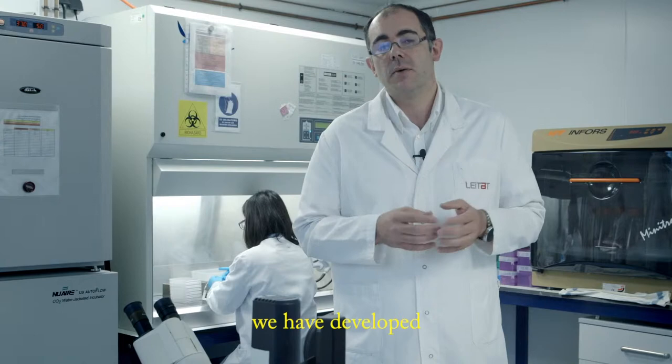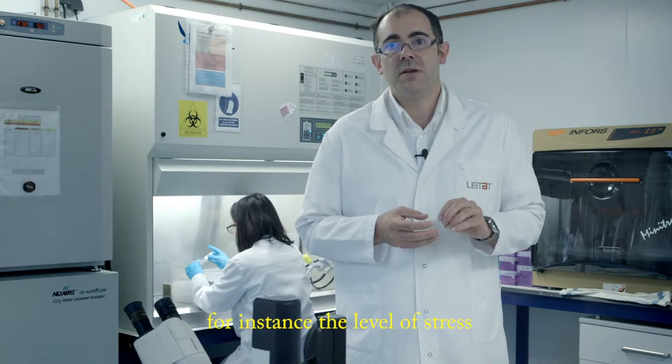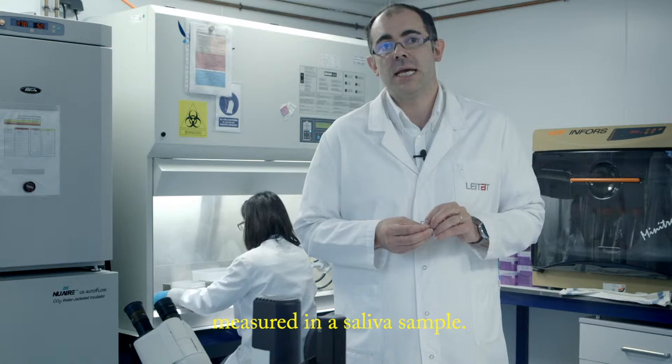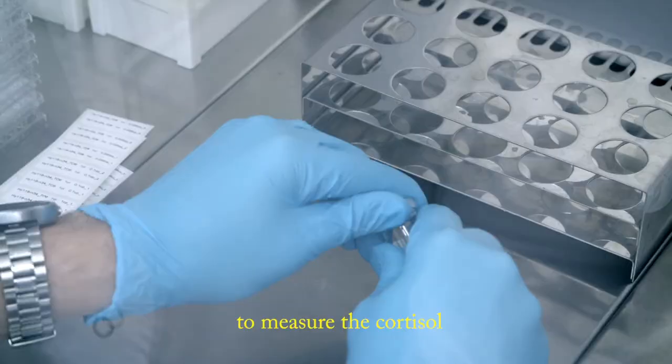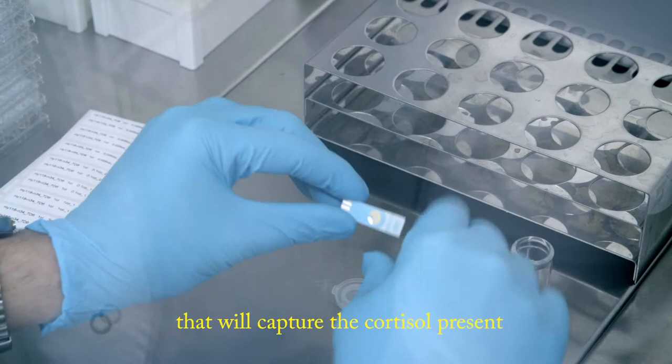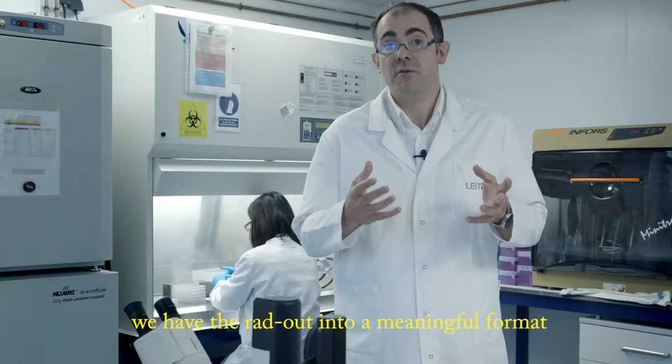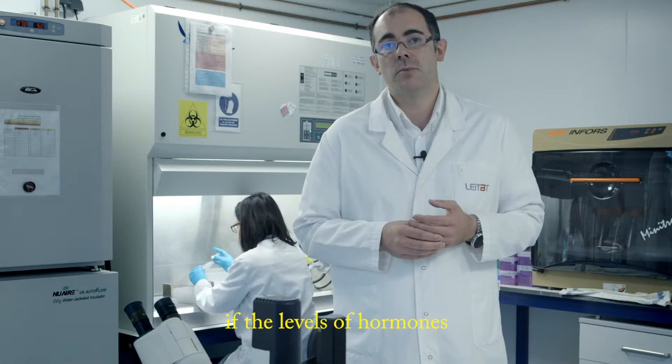On this framework, we have developed different kinds of electrodes that are measuring, for instance, the level of stress measured in a saliva sample. The biosensor was created in order to measure the cortisol using monoclonal antibodies that will capture the cortisol present in a saliva sample. And then we have the readout into a meaningful form for the medical doctor to understand if the levels of this hormone are high or low.